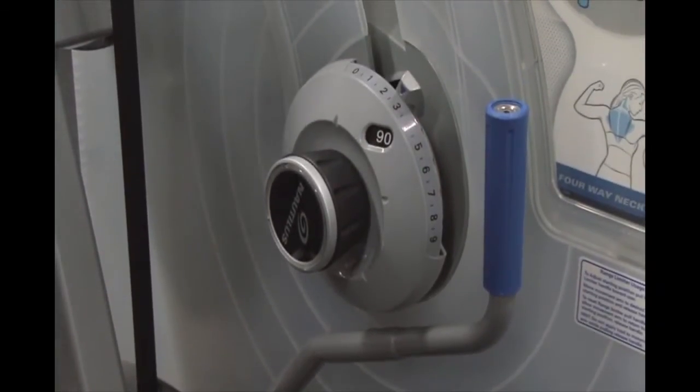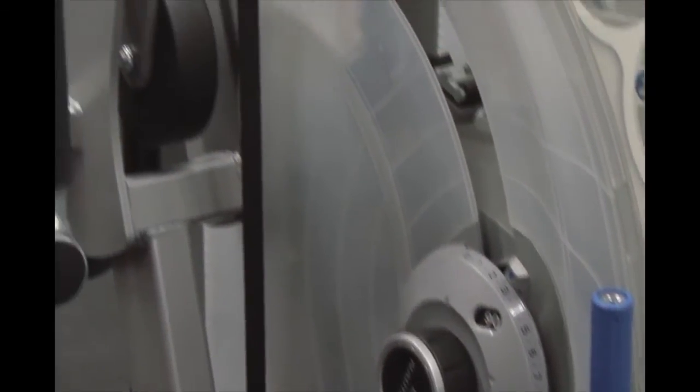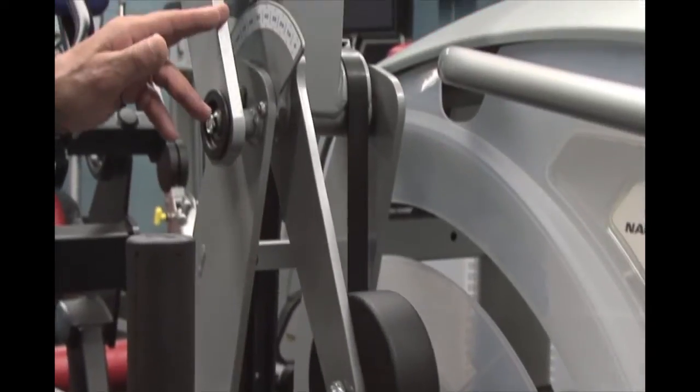And in conjunction with the range of motion limit adjustments, we have a goniometric measurement of patient range of motion performance.